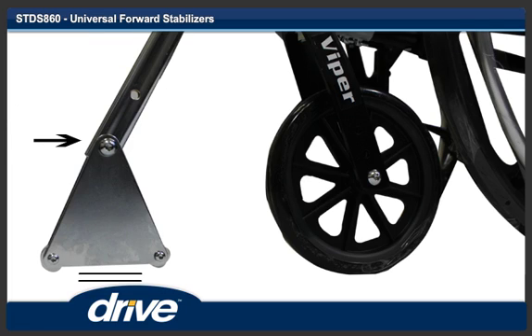Step 7. Inspect that the hinge triangle has clearance of one inch off the floor. If there is not enough clearance, move the hinge triangle to the second hole. When the correct position is set, tighten the cap screw that the hinge triangle swivels on. Do not over tighten, since this part has to be able to swivel.